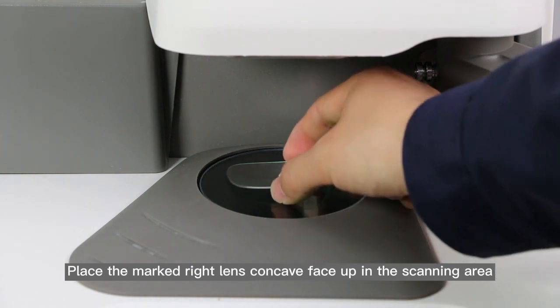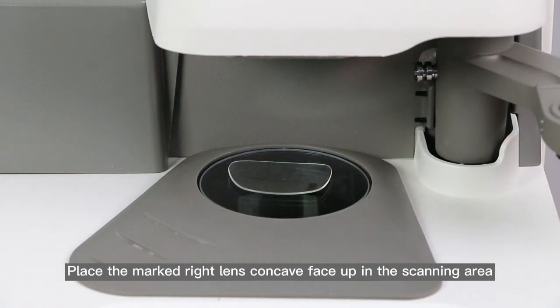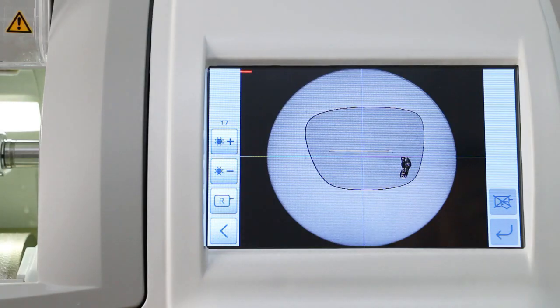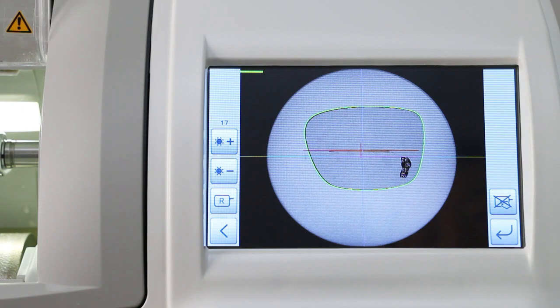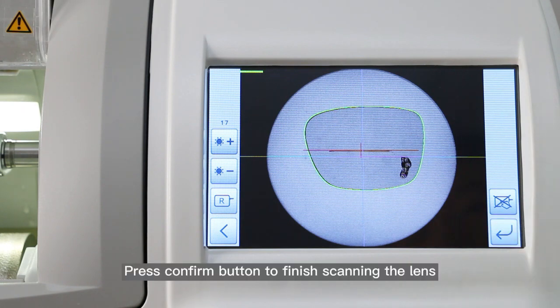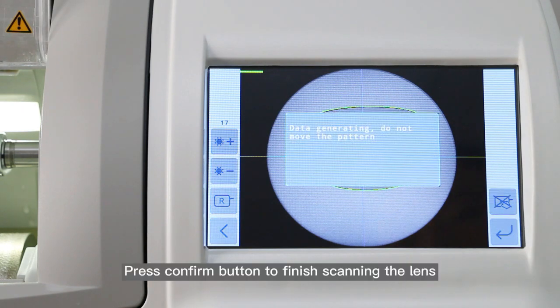Place the marked right lens concave face up in the scanning area. Press the confirm button to finish scanning the lens.